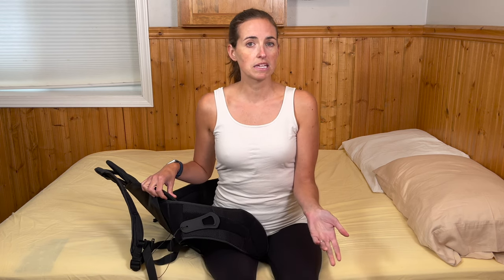Take a deep breath — it feels really good to just sit here for a moment and make sure you feel stable. If this is all you do the first time — just take a couple of deep breaths before putting the brace right back on — that's okay too. It's really a comfort measure. The brace oftentimes gives you a lot of security and some people have a lot of anxiety about this process, so take your time. I'm going to move it around to the side, keeping my shoulders and hips aligned throughout — not twisting — and set it aside so someone can assist with any back tasks that need to be done.